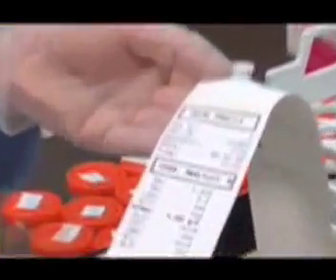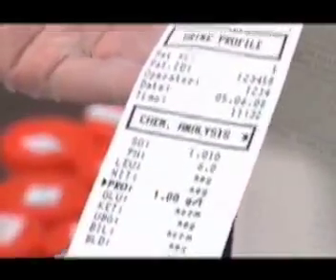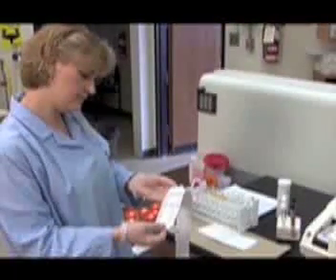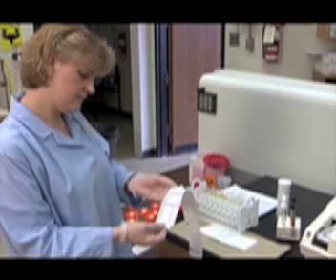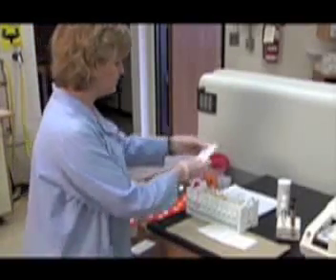Revision of test results on all specimens is an important part of urinalysis. It is key in determining which urines will be examined microscopically. Microscopic examination of urine is done to detect the presence of red blood cells, white blood cells, bacteria, epithelial cells, casts, or crystals within the specimen.